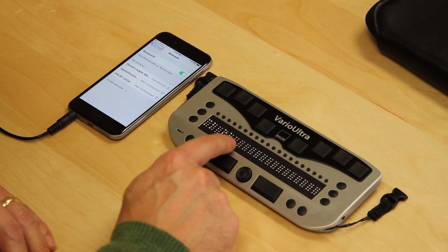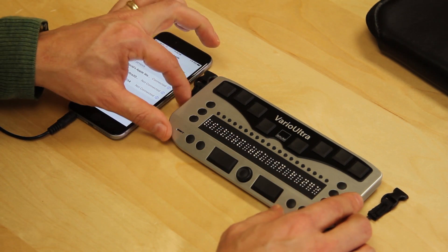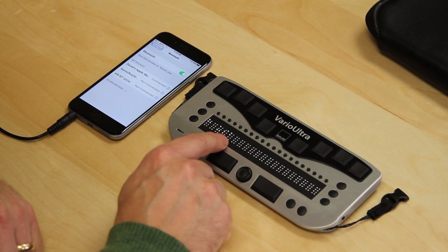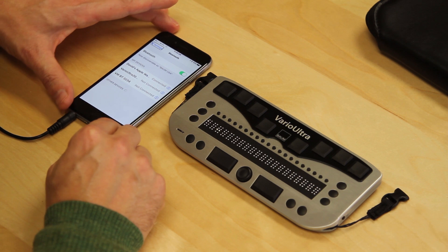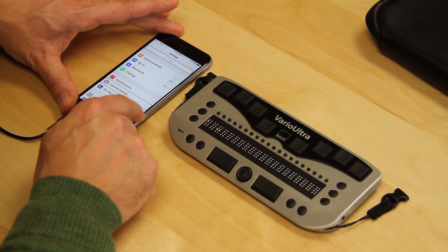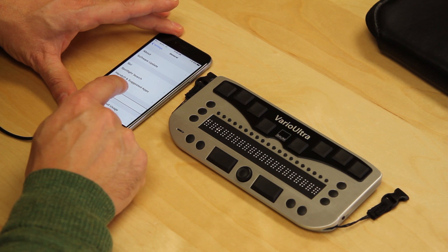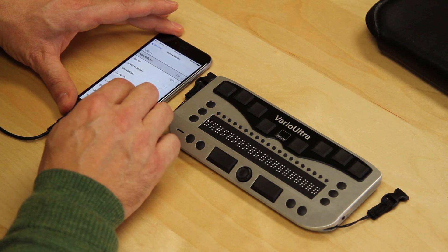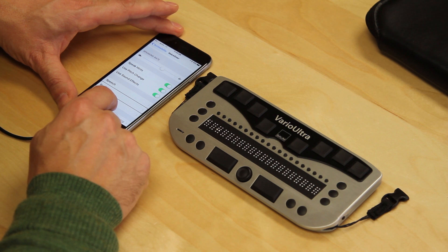I NaviStick down on the Vario Ultra to OK and select OK. I'm now going to switch Vario Ultra to Braille display mode. When I do that, it initially displays USB. On the iPhone, I exit out of Bluetooth settings and come down to General, then Accessibility, then VoiceOver. I come down to Braille settings in VoiceOver.